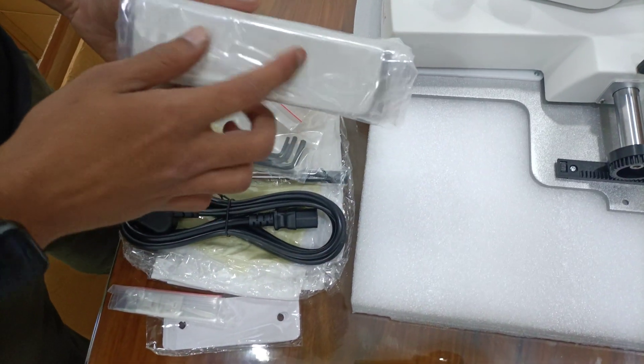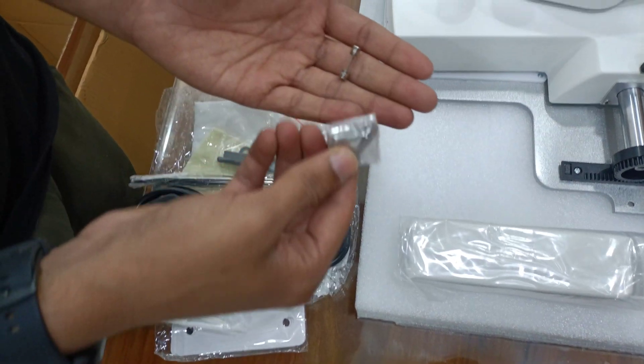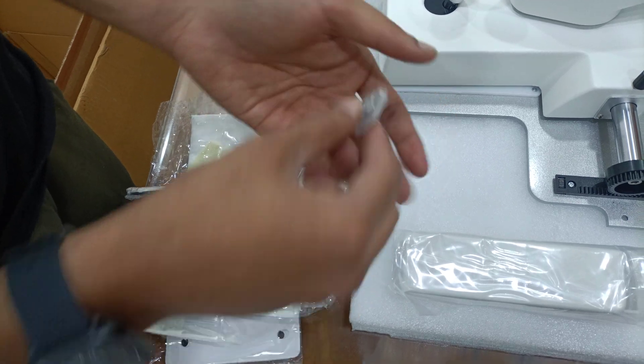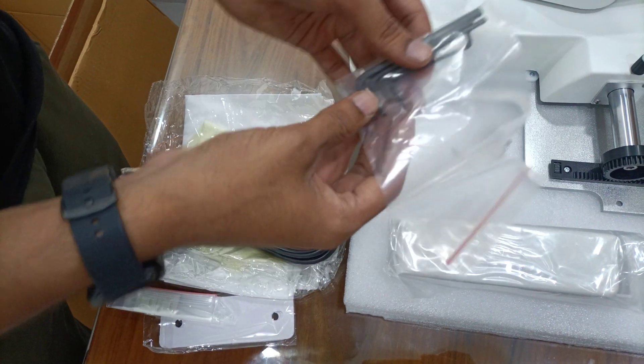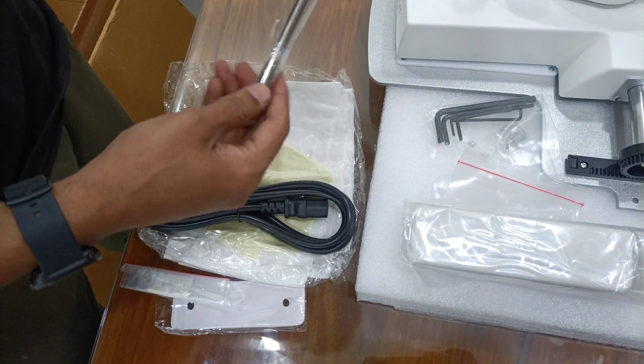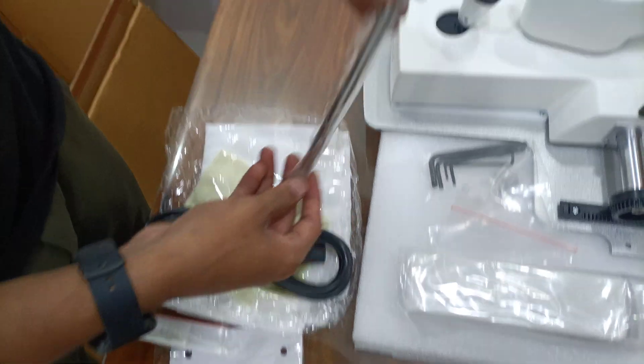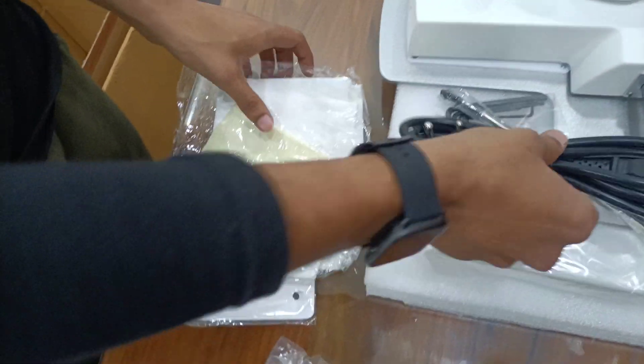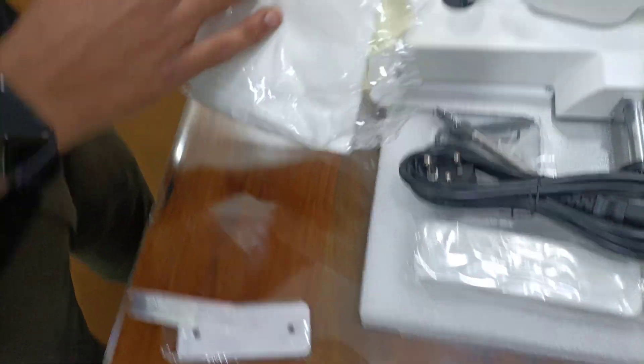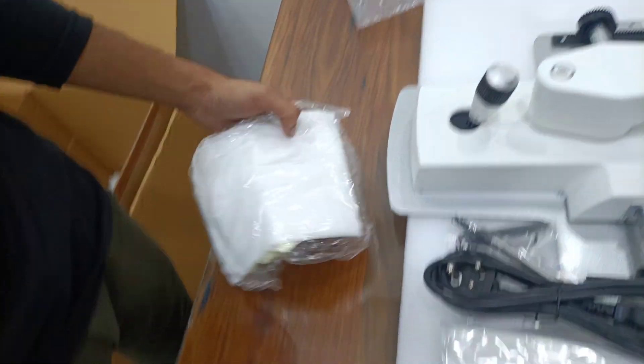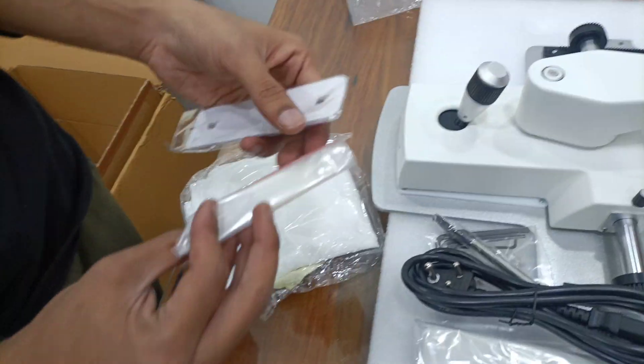Accessories, wheel cover, screw, extra fuse, Allen key for installation, testing rod, cord, slit lamp cover and dust cover, chin rest paper.